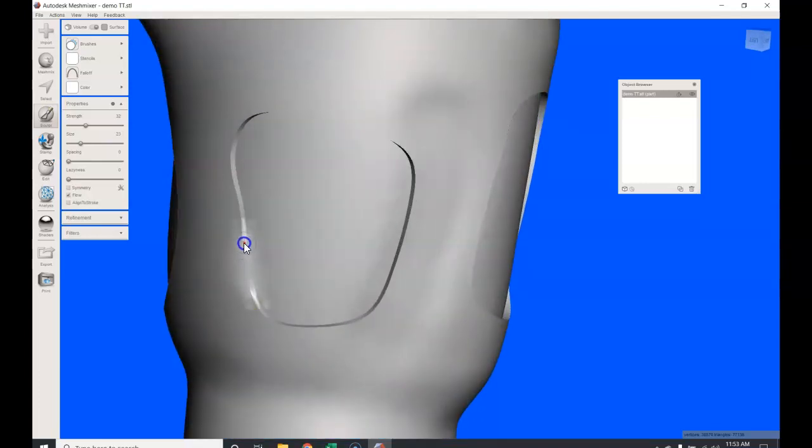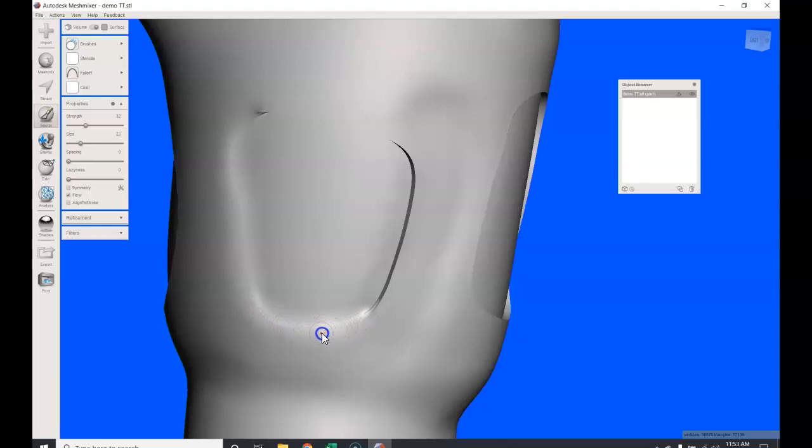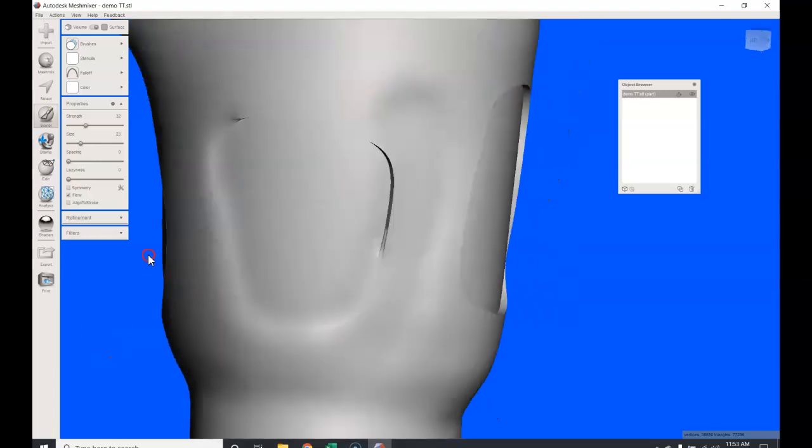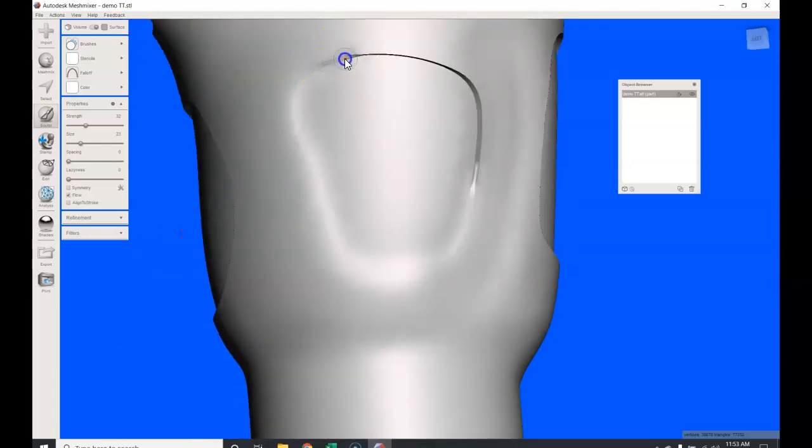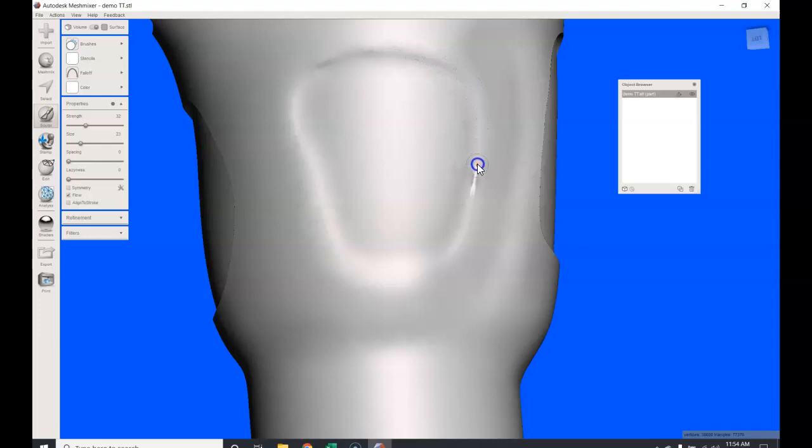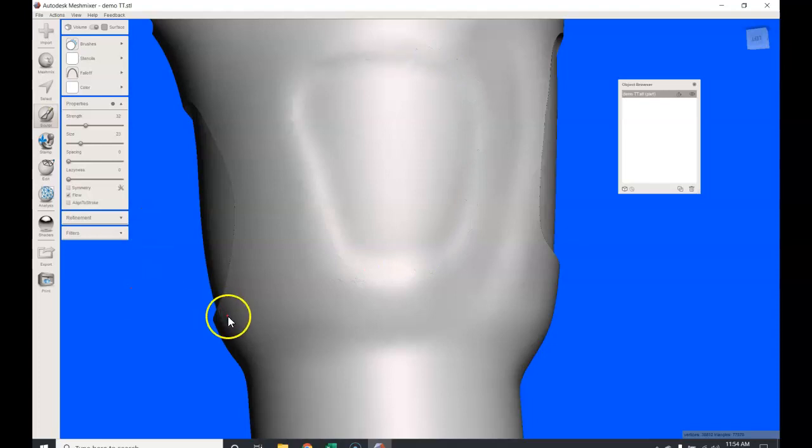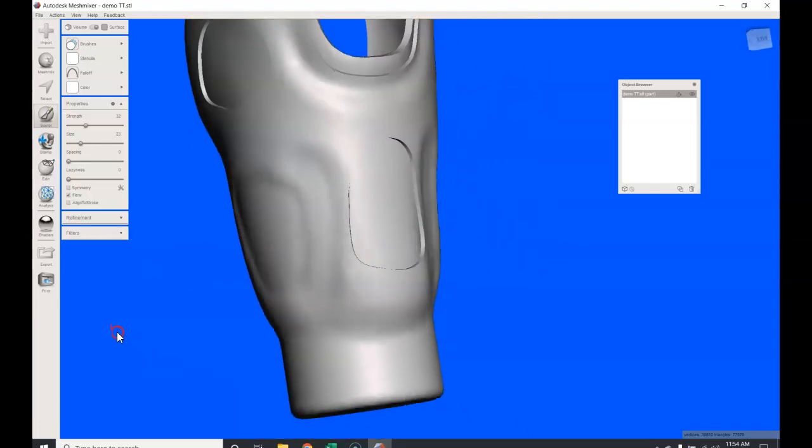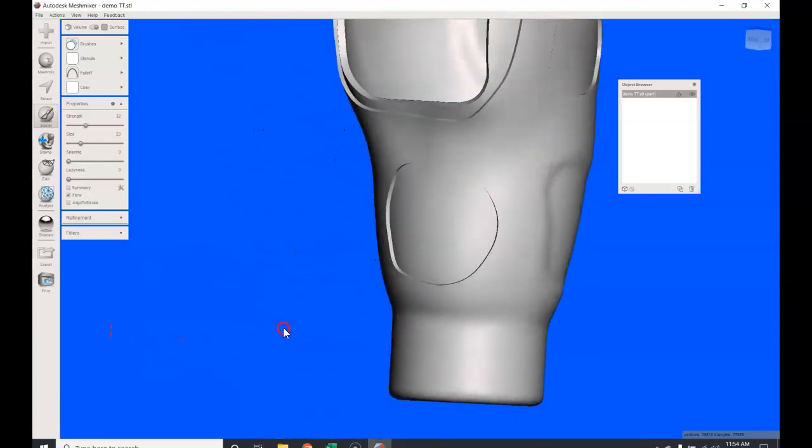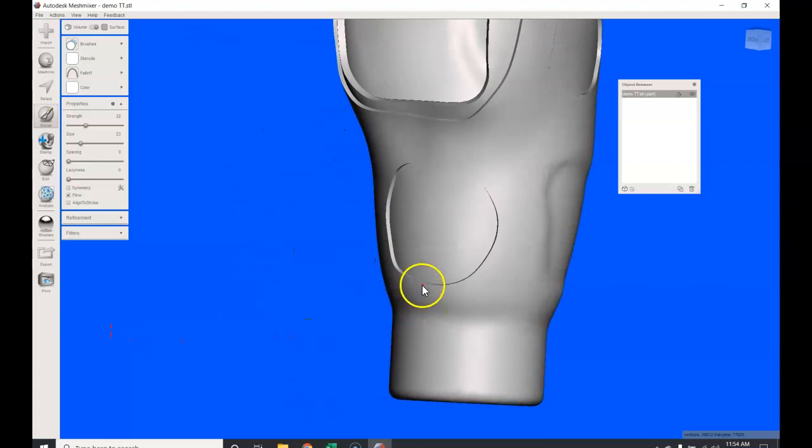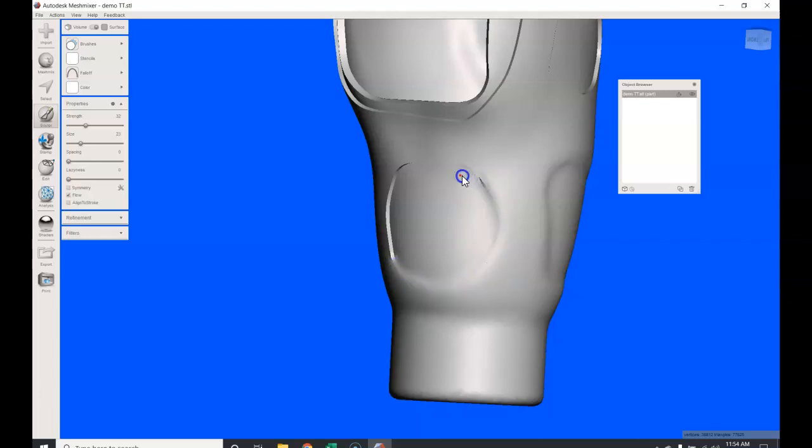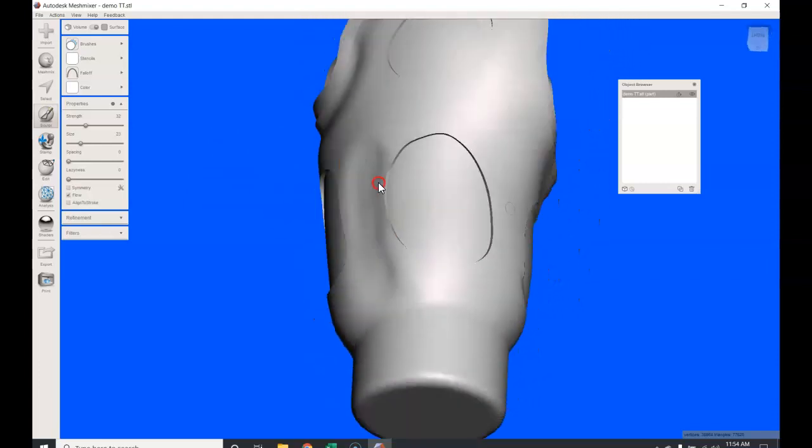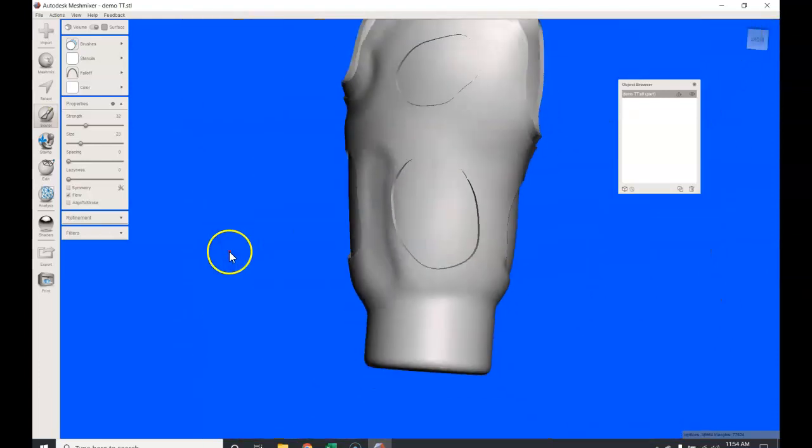All right, so playing with the sculpting tools is a little bit different. I don't normally do this when I'm doing a PETG print; I don't really care, it's a test socket, and I actually like to have that squared off sort of edge when I'm printing it. Actually, it makes my print with an FDM printer a little bit neater. This is the type of tool you may want to use to smooth up these transition lines when you're doing a sort of a printout of SLS or multi-jet fusion, so you get that nice really nice kind of smooth transition. It gives it a really nice look. So these are other tools that I'll explain at a later date and time, but you really don't have to.